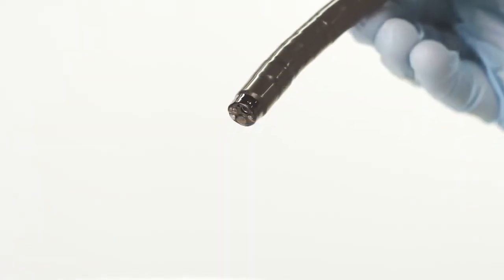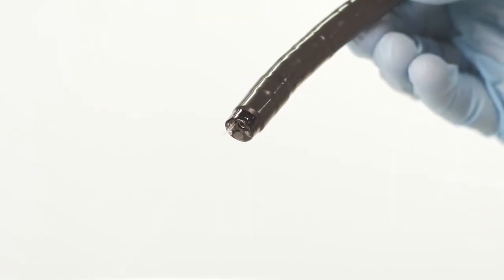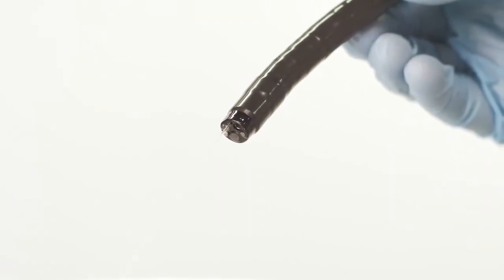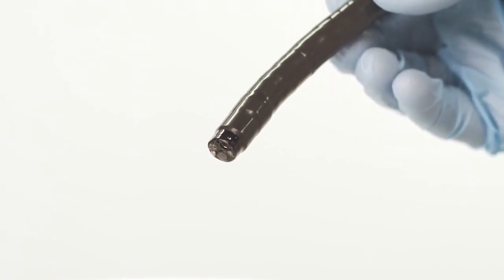You may now prime your pump to confirm that water exits from the endoscope. Should any leakage be noted, re-tighten all water channel and adapter connections. You are now ready for your case.